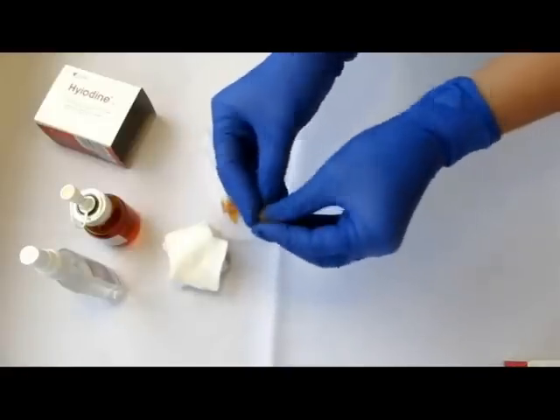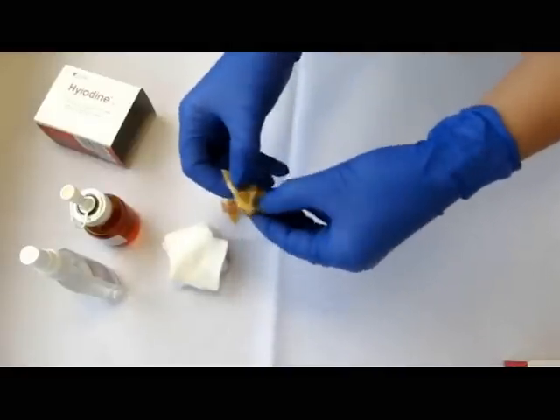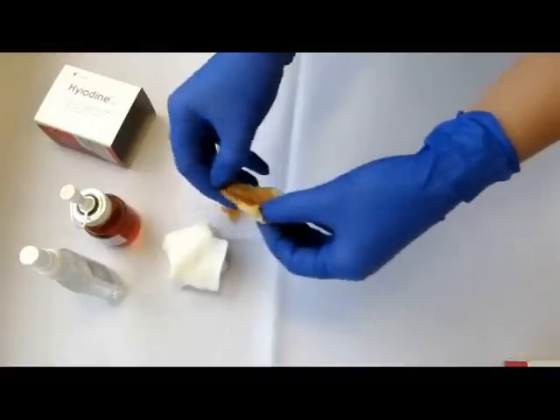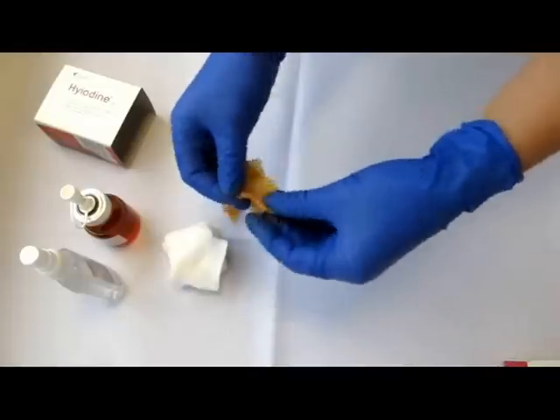Check if the gauze is well saturated with the gel by squeezing the gauze in fingers. It should be possible to squeeze small amounts of the gel out of the gauze.